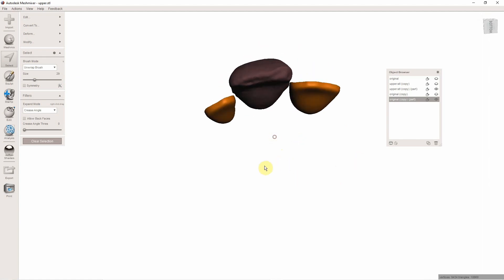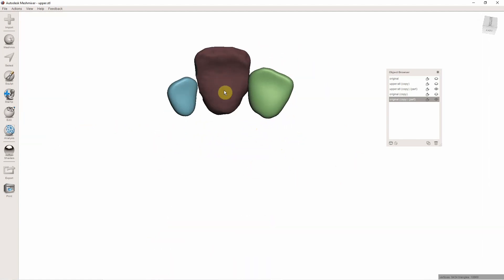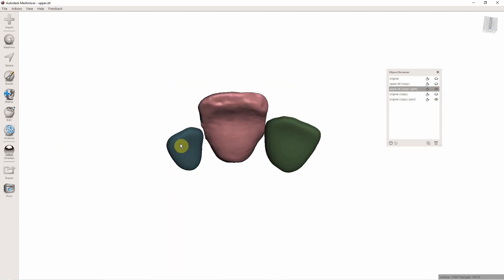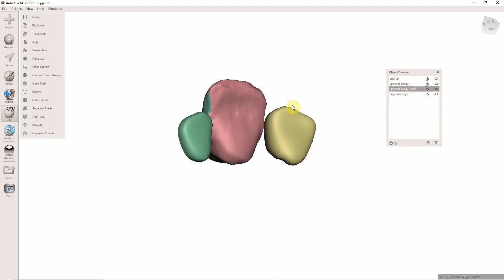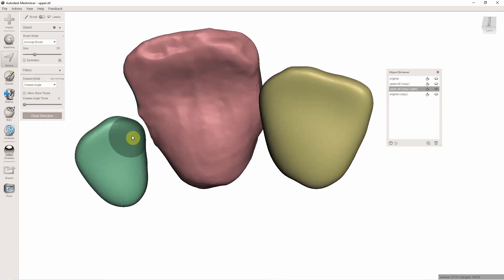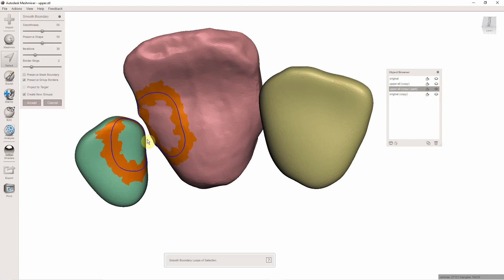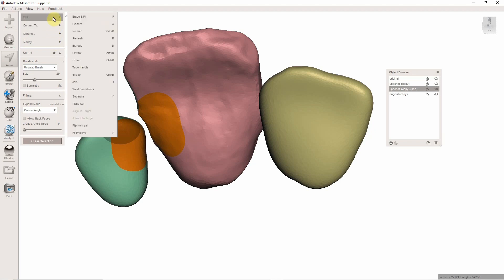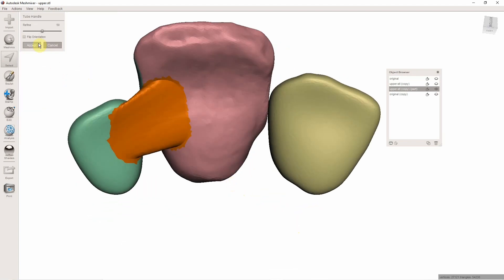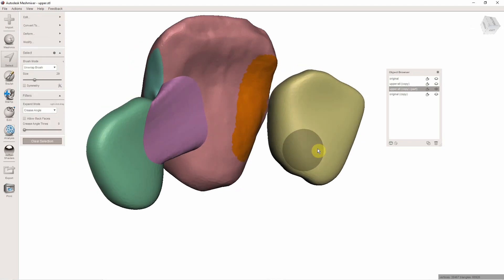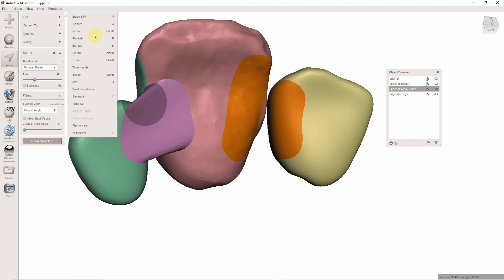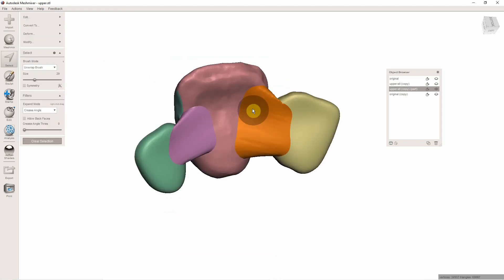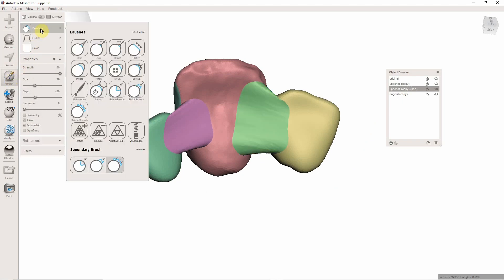So now the question is how do you connect, and this is actually the most difficult part, this to this. The first thing you want to do is see where they are when you click. I click the tooth, it's called this, and I click these, it's called this. If you hold Control down on your keyboard and select only those two different things and hit Combine. Now what we need to do is come in here and we need to make our connectors. So I'm going to come in here and hit B, and then I'm going to go to Edit Tube Handle. Like that. And I'm going to go to Clear. And then I'm going to come in here and do the same thing. So I'm going to come in here and make a longer connector here and a long one here. Hit B as in boy, Enter, Edit, Tube Handle, and hit Accept.